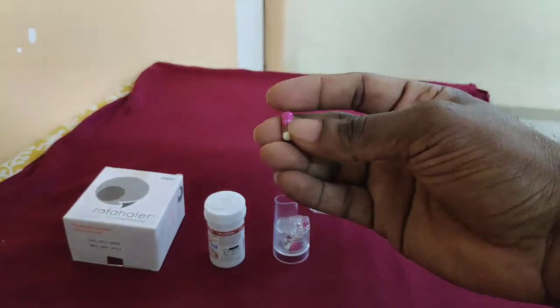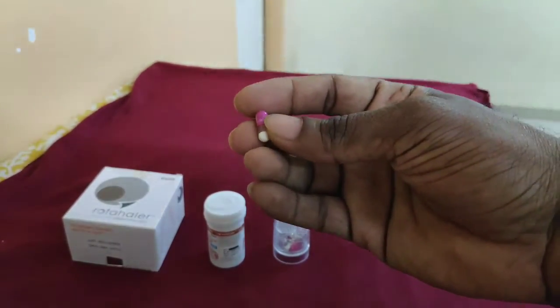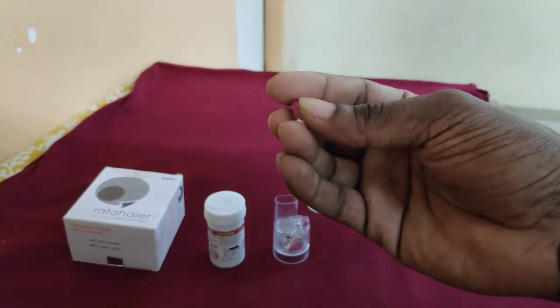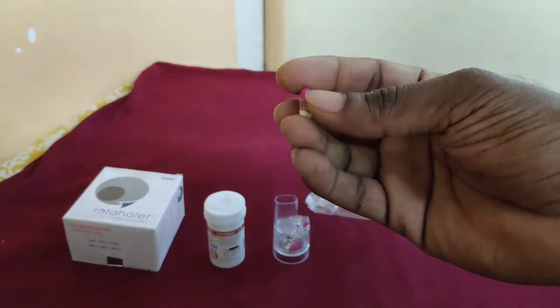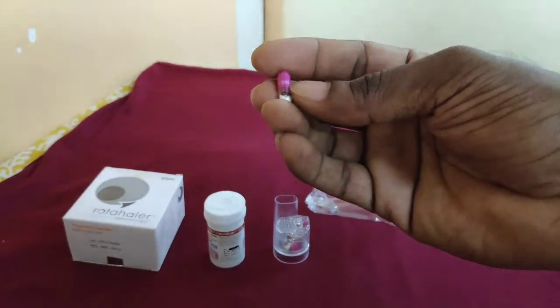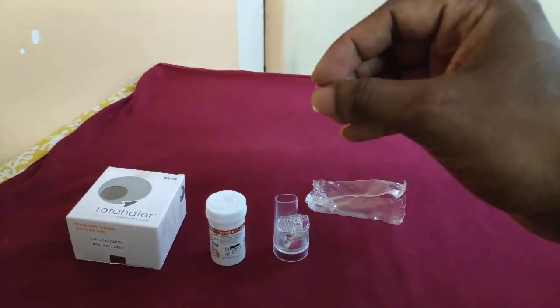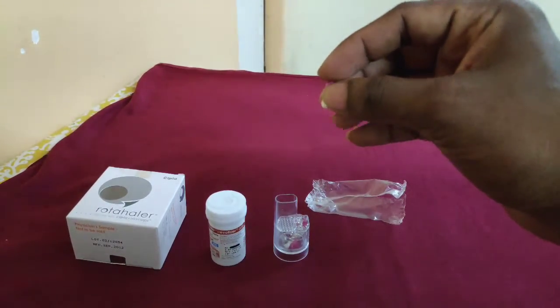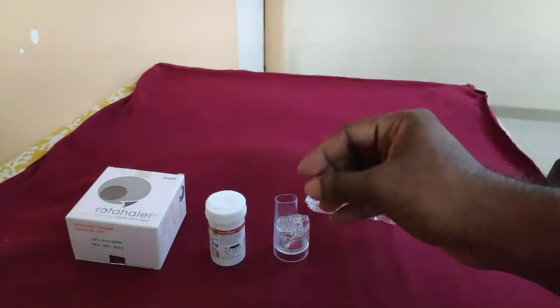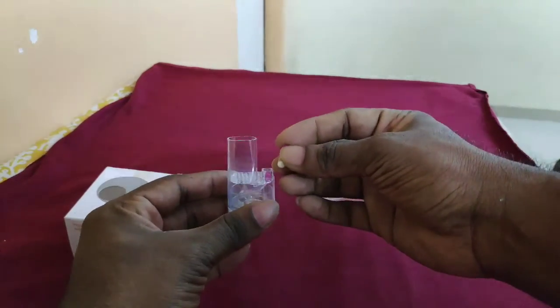It is available in blue, brown, and chocolate color. These are the different colors as per the manufacturing system. So you have to notice that when you are inserting, the colored portion should be on the top and the transparent portion should be below that. So I hope you understand the demonstration.